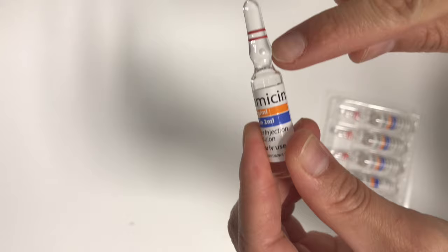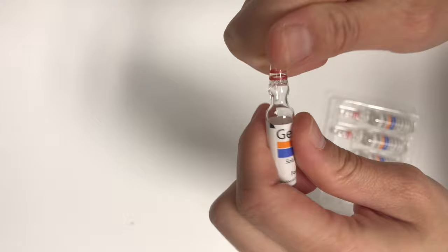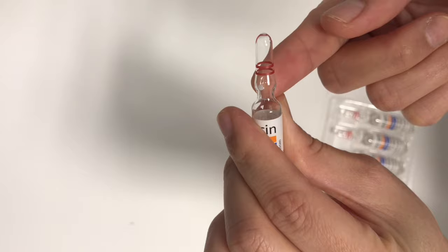Hi friends, so in this video I'll show you a tutorial on how you will manually break your ampule if you're not having any ampule breaker in your ward, just like in mine. So you can manually break it. If you see a marking, a white dot, it should be away from you and then just snap it.